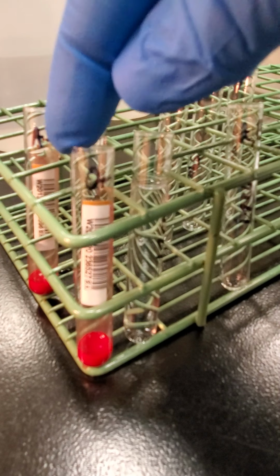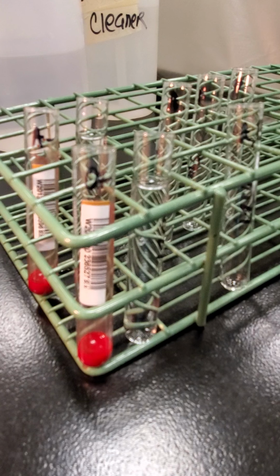So these are my two units. I'm just going to do an example of two different types, but on your worksheet I want you to fill in the anticipated reactions and what tubes, what testing you would include, because there is some decision making when you decide how to test this, and we'll go over that. So I don't want to test everything and show you all the reactions, because then there's not really any decision making on your end.